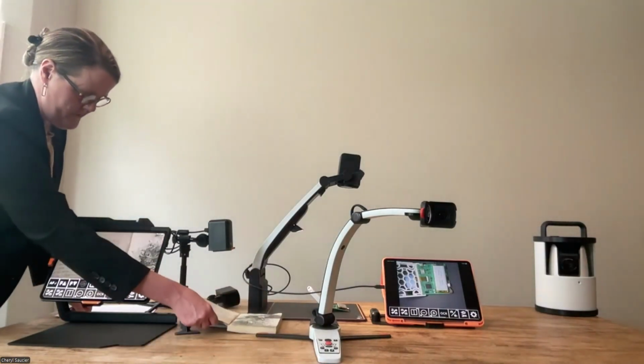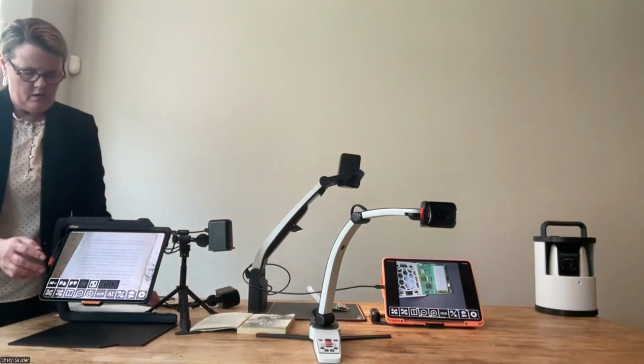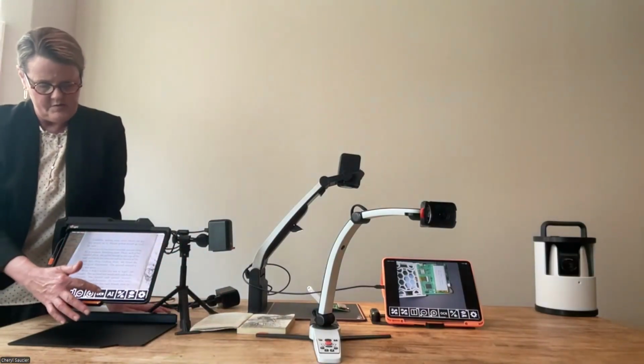Put this up here. Let me hit that OCR so you can see how fast that goes.